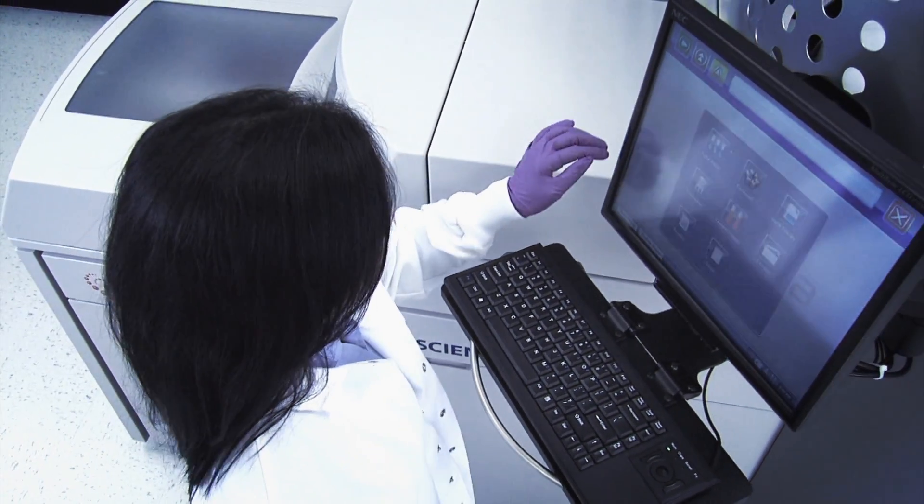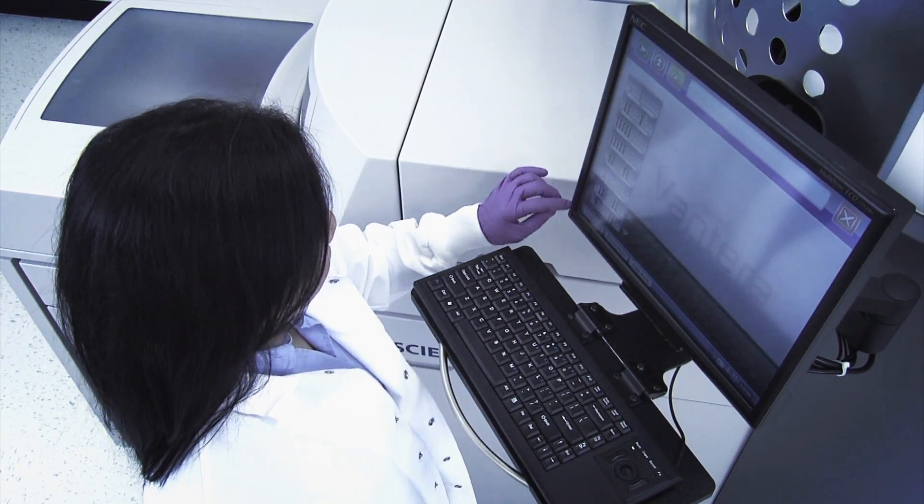Clinical laboratories will benefit from this technology by enabling new assays that allow clinicians to better serve their patients through personalized care.